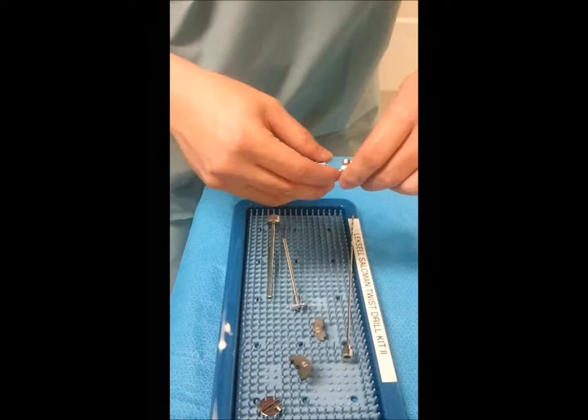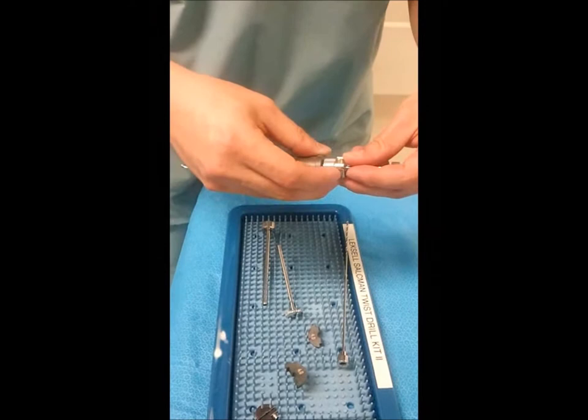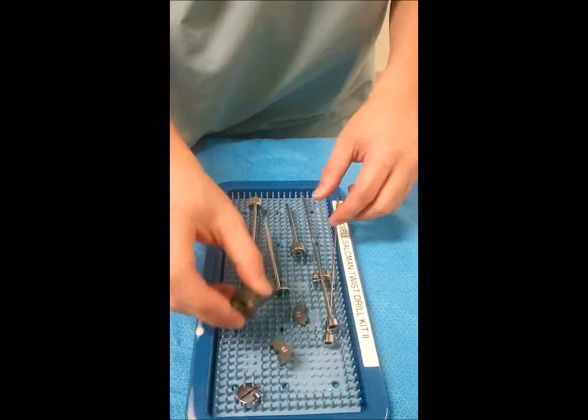For our initial drilling, we'll need the large reducing tube, and we'll also want the stop nut on there just to help from plunging too deep, and we'll measure off of that as well. You can see clearly that you need the reducing tubes, and we'll use this piece in just a minute.